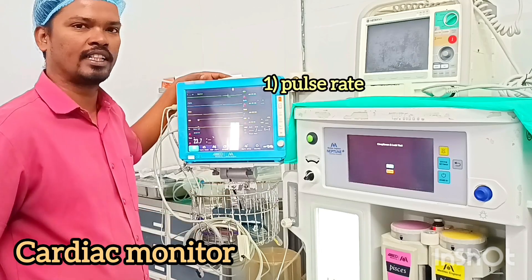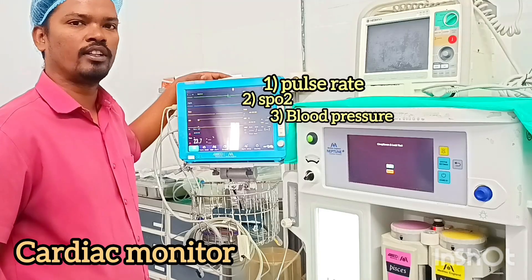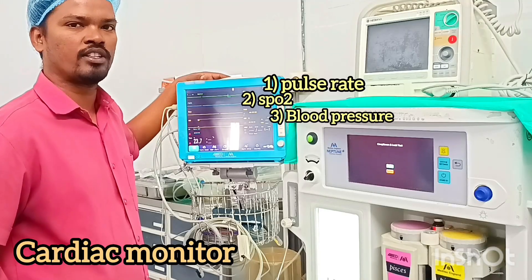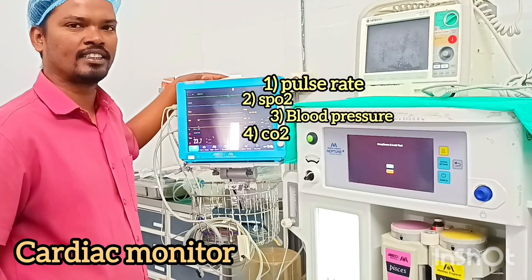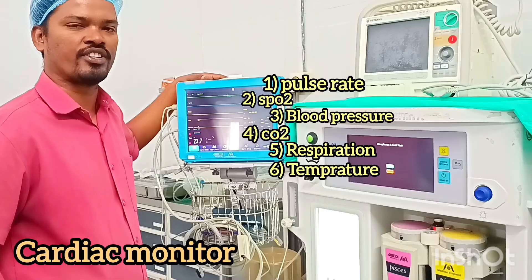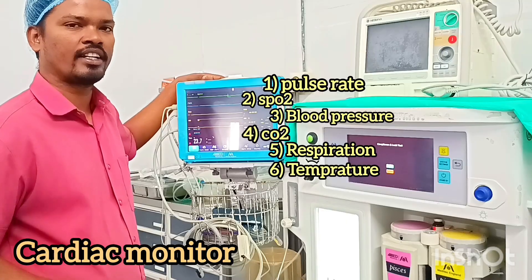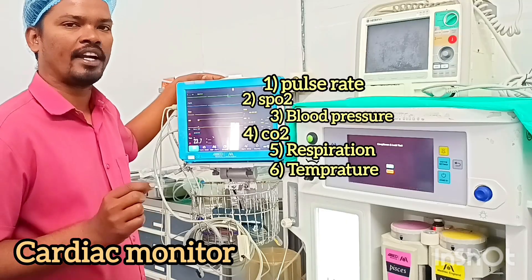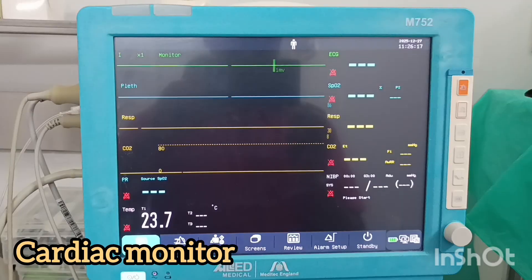The first thing is pulse rate, the second is saturation, the third is blood pressure, the fourth is carbon dioxide, and the fifth is respiration. These are all the things we check in the cardiac monitor.